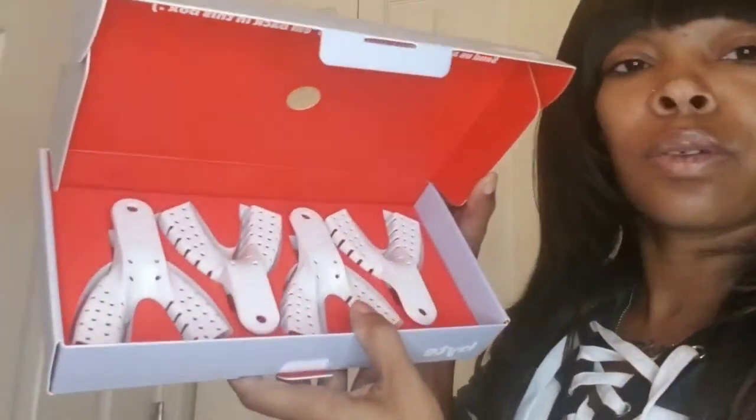These are the molding trays. Basically when you're done with everything and you're sending it back off in the mail, you're going to put in the mail these molding trays inside that prepaid package they already have attached to the baggie. It says 'Don't toss this out' and 'Use this sticker to seal the box before you send it back.' So you'll put your molding trays back in this box, take this little sticker off and seal it, then put it in the little prepaid bag they give you — you don't have to pay any shipping.